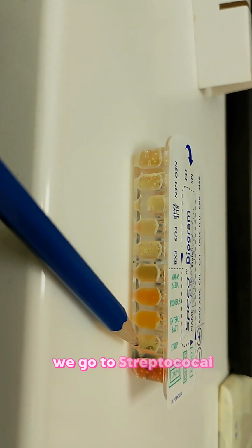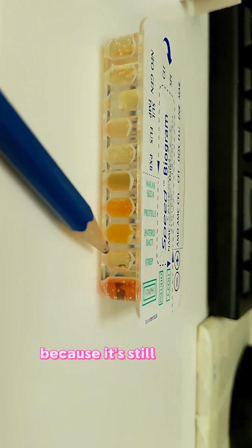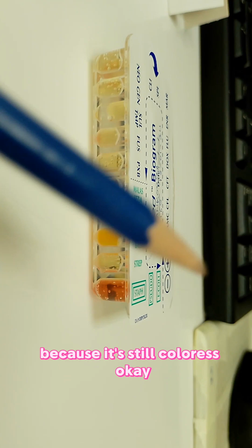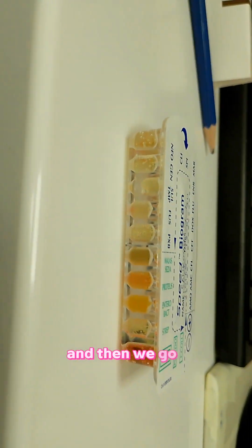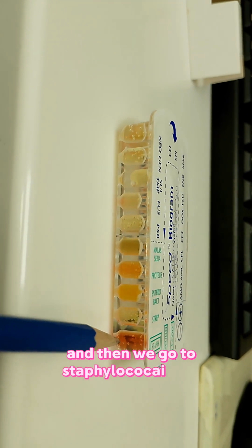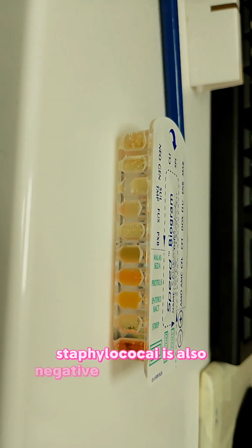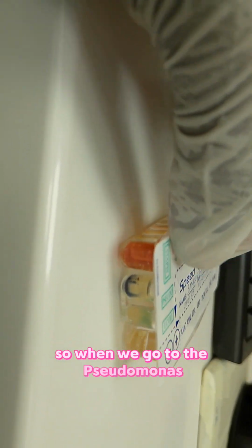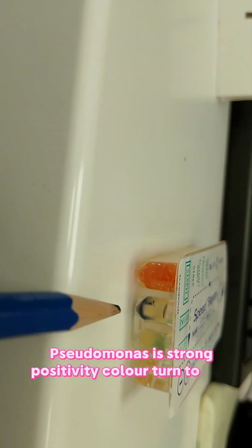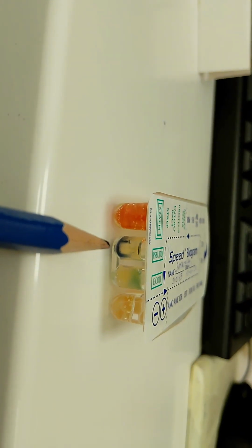We go to Streptococci. Streptococci is negative because it's still colorless. And then we go to Staphylococci. Staphylococcus is also negative. This color is okay. So when we go to the Pseudomonas, Pseudomonas is strong positive. You see the color turned to blue.